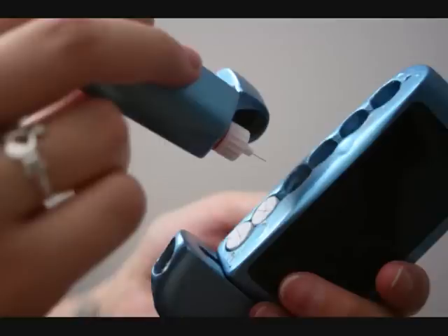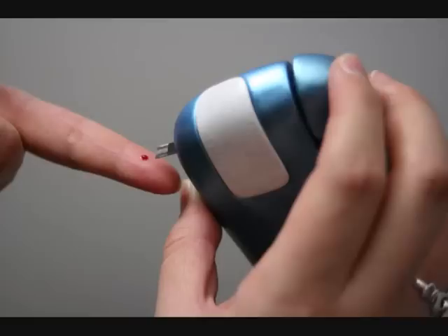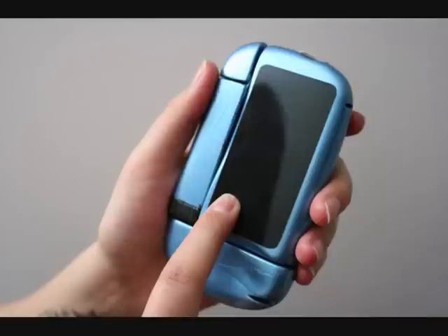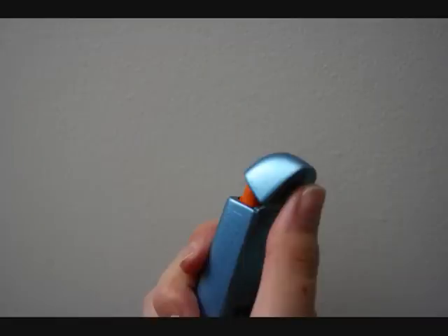It has a number of features that include storage compartments for 6 new pen fill needles, a laser lancet, a compartment that holds a stack of 50 test strips that gets automatically ejected, a touch screen for an easier interface, and an insulin pen that has a vacuum wall like Thermos technology, which is used to control the temperature of the insulin, keeping it cool at different temperatures.